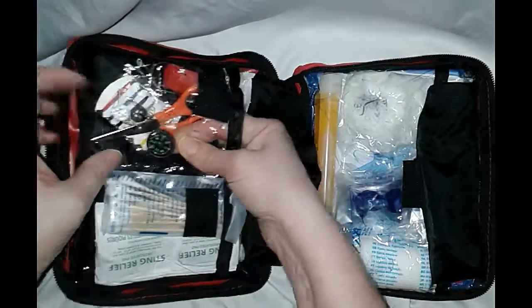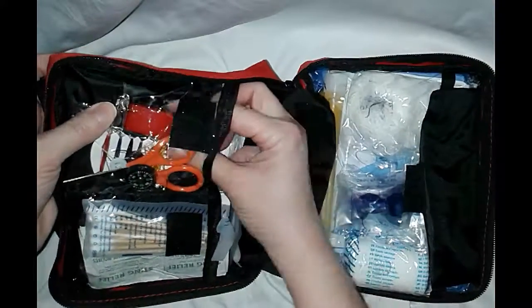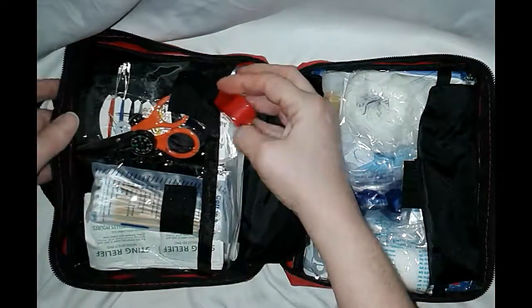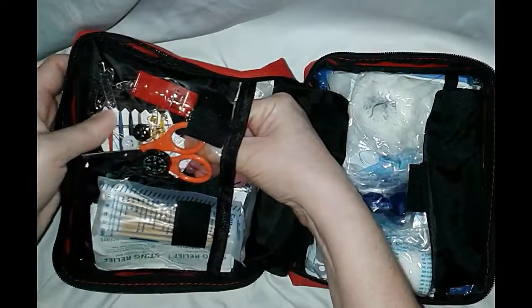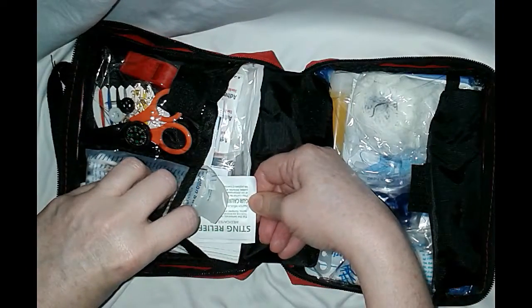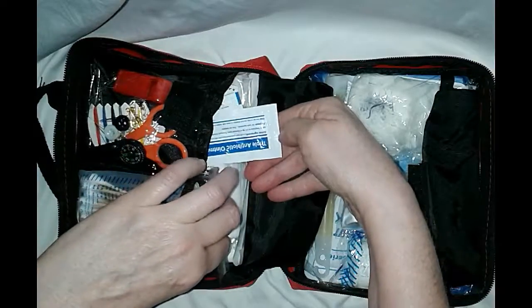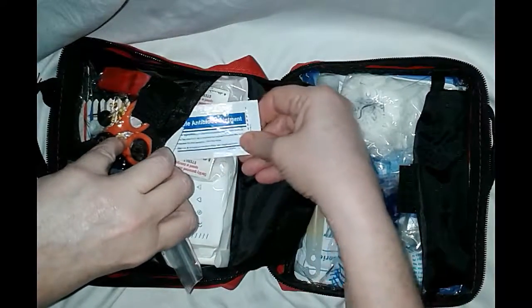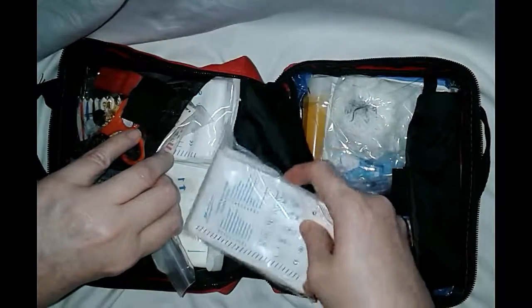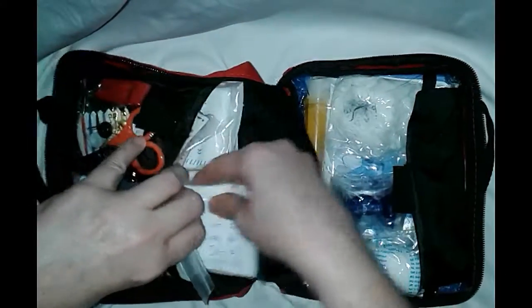On this side there are scissors and a compass — oh, that is so important — and a first aid guide. There's a whistle, which is very important for signaling for help. There's a sewing kit, swabs to clean out infections, sting relief for when you get into a hornet's nest, a first aid blanket, triple antibiotic ointment, and different size bandages — round ones, small ones, larger ones, and triangle bandages that show you how to apply them to your head, hands, and arms.